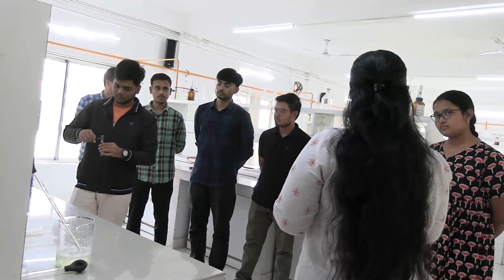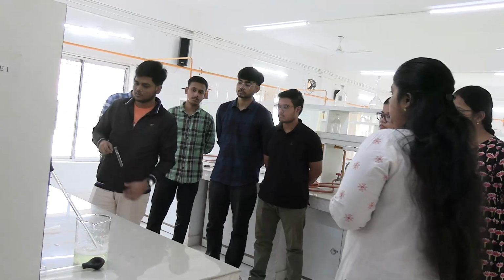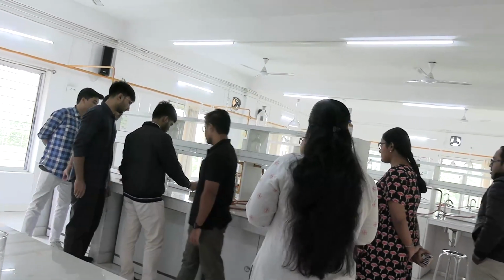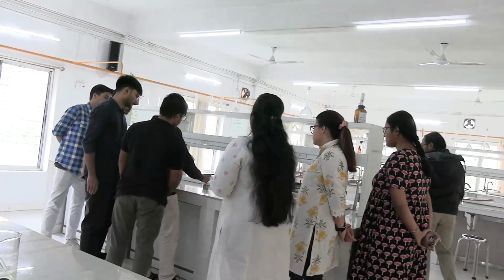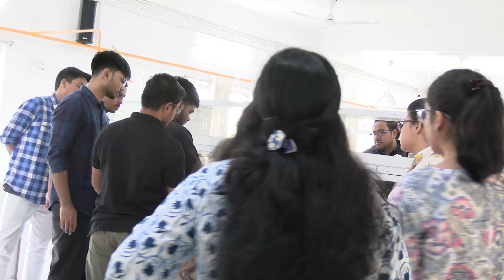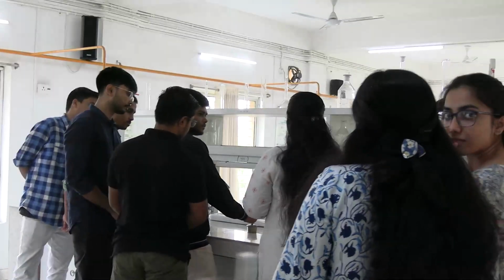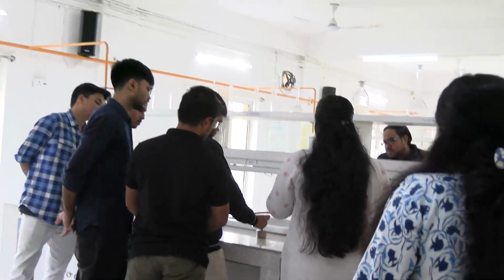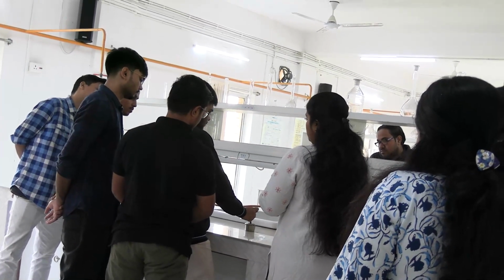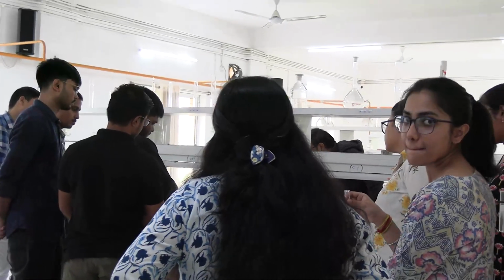Always fix your test tube with test tube holders and then heat. The burner is there. Heat the upper 1/3 part, the upper part of the test tube only. Why do we heat only the upper part? Why not the whole test tube, or the lower half? Coagulum will form in the upper part. Yes, coagulum will form and the lower part will be taken as control to compare. We can compare it easily with the transparent lower part. Clear?